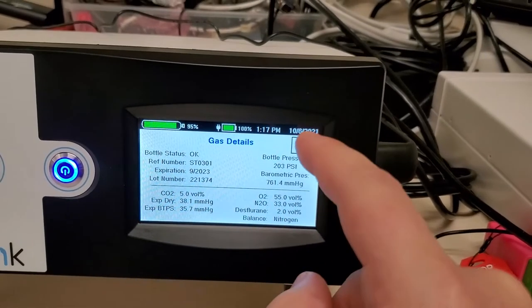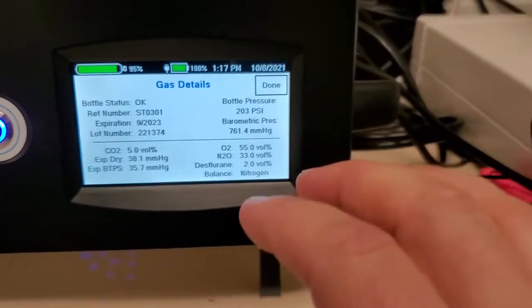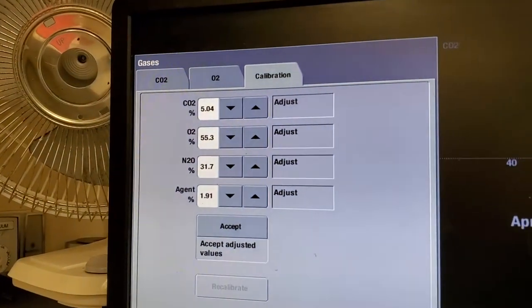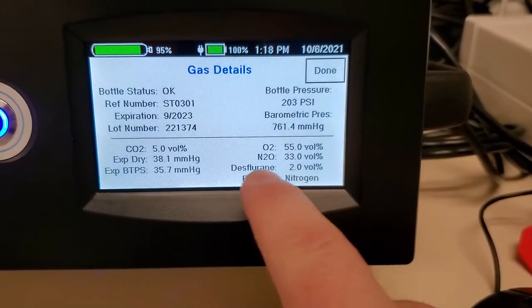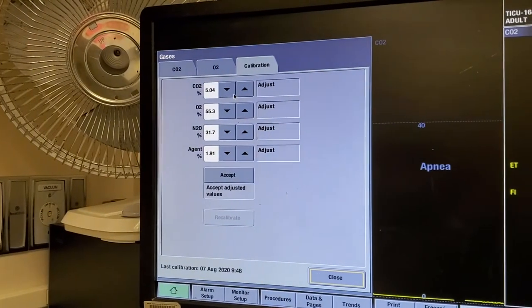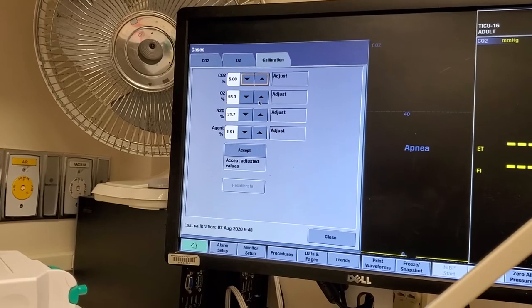Its mixture percentages, its dates — everything is all on the bottle. You can see this bottle expires 9 of 23, CO2 5%. We have to configure these values right here according to what the bottle says. CO2 is 5.04%, so we turn this down. O2 is 55% by volume, so I'm going to go ahead and adjust that one.